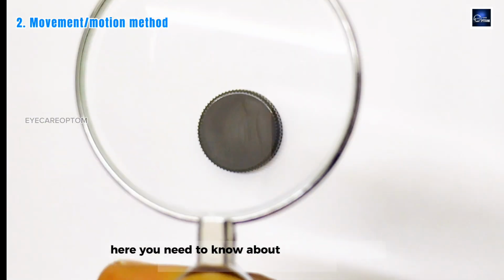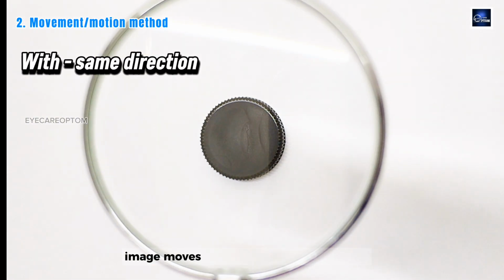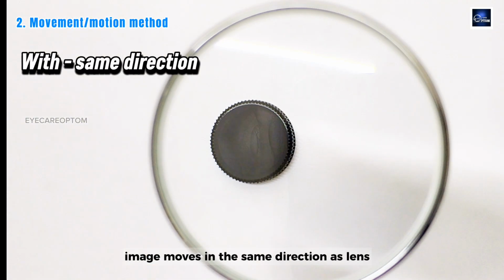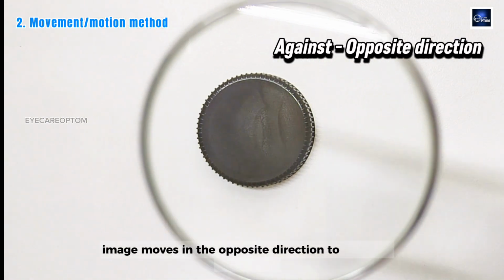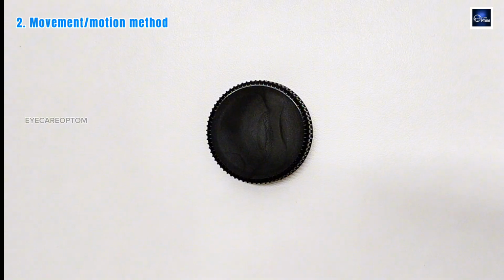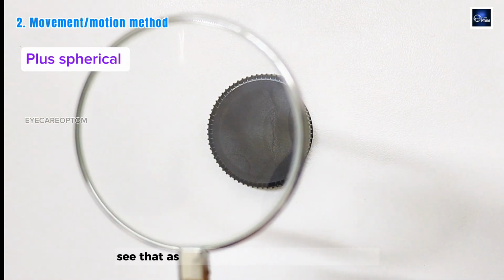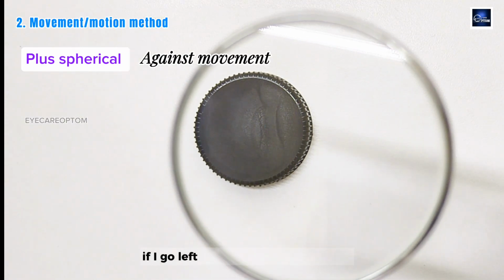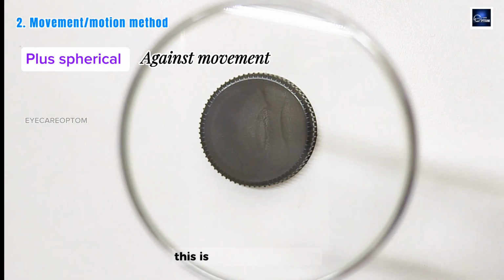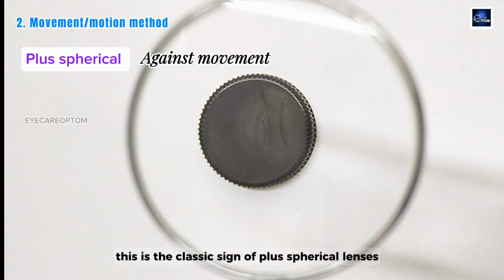Here you need to know about with and against movement. In with movement, the image moves in the same direction as the lens. In against movement, the image moves in the opposite direction to the lens movement. Let's start with a plus spherical lens. See that as I move right, the image moves left. If I go left, the image moves to the right. This is against movement. This is the classic sign of plus spherical lenses.